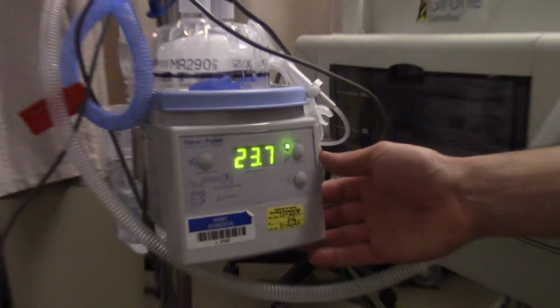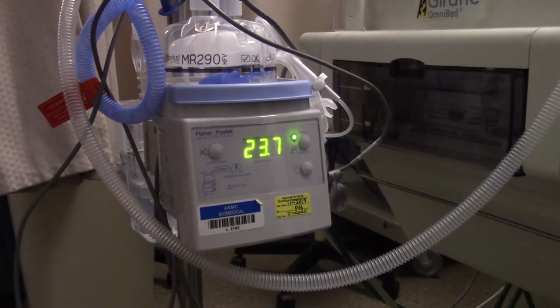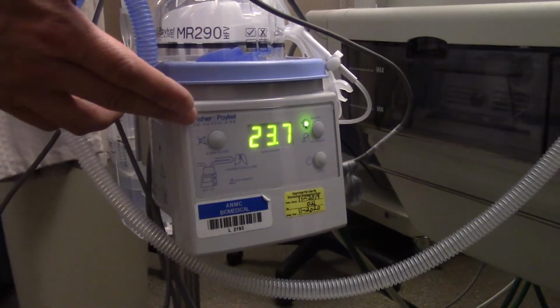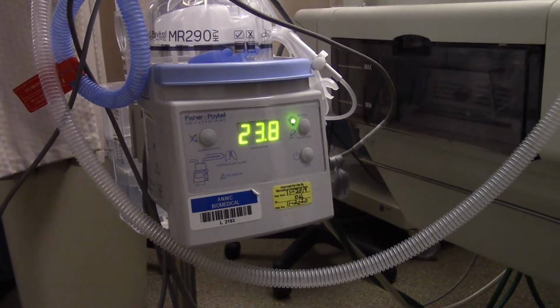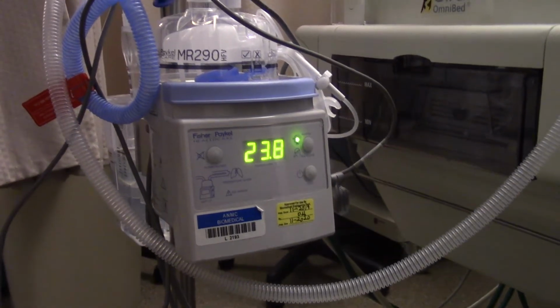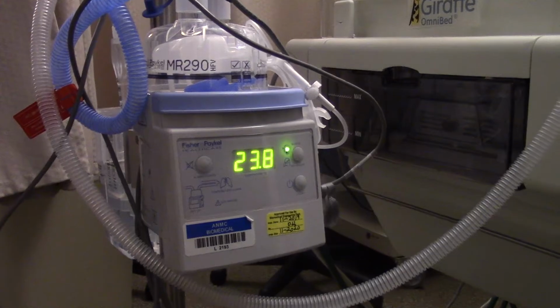And one other thing to highlight, the importance of the temperature, as David was saying. In addition to that, for every degree of temperature that you lower this, the baby is having to make up that difference in evaporative heat loss from their airways, which means that they're going to work harder, they're going to burn more calories. So it is important to keep this at 37 degrees if you can. Yep.